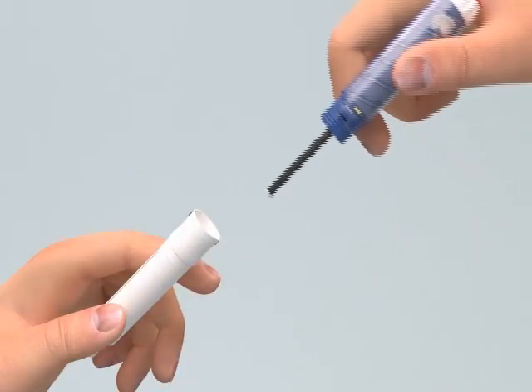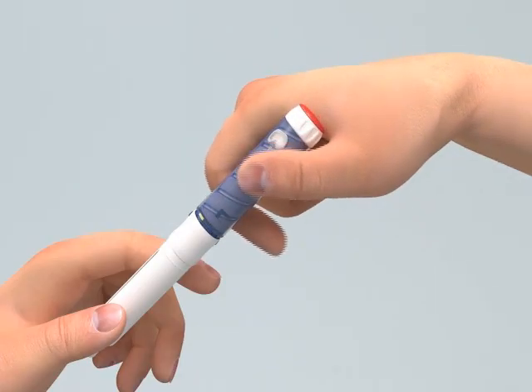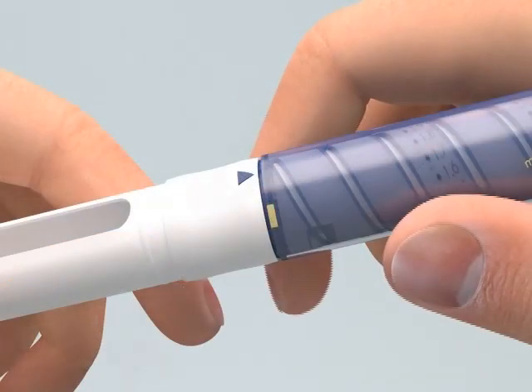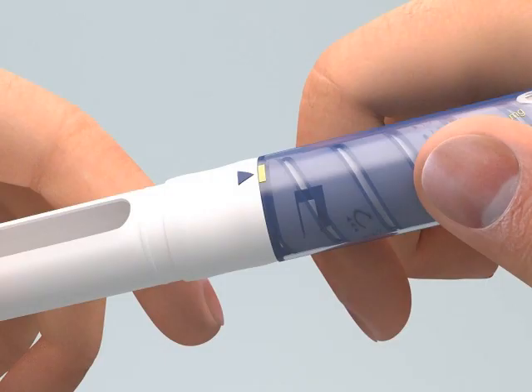Lower the pen body onto the cartridge holder so that the black rod presses against the cartridge plunger. Screw the cartridge holder clockwise onto the pen body until there isn't a gap. One of the blue arrows must line up with the yellow mark, pen 5, or with the white mark, pen 10, on the pen body.